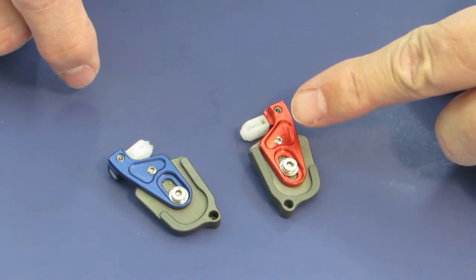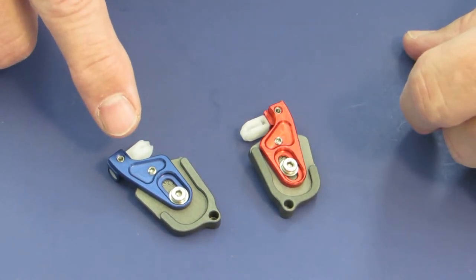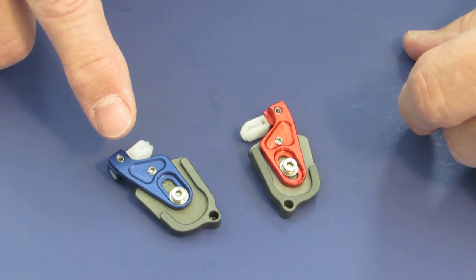This one will work in the upper left and the lower right, and the blue one works in the upper right and the lower left quadrants.